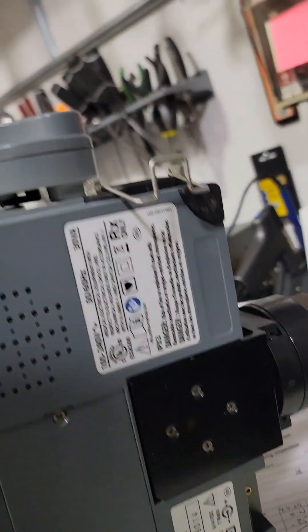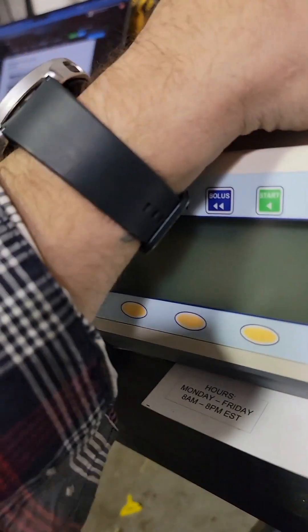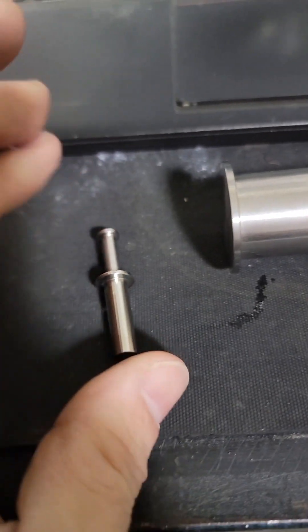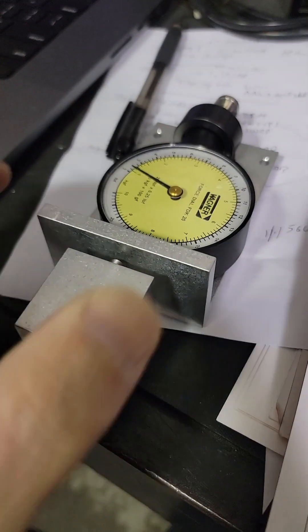You have the pull clamp, serial number location, this is your battery door — you'll find your nickel metal hydride or nickel cadmium battery pack. The calibration kit consists of a large plunger, a small barrel clamp, large barrel clamp, and your force gauge.